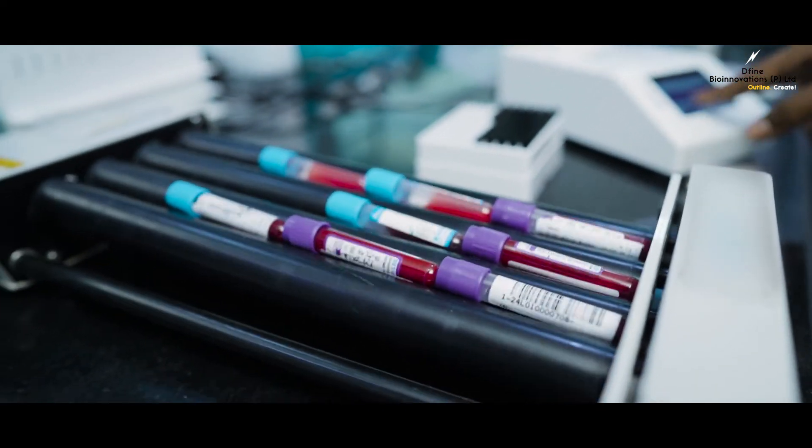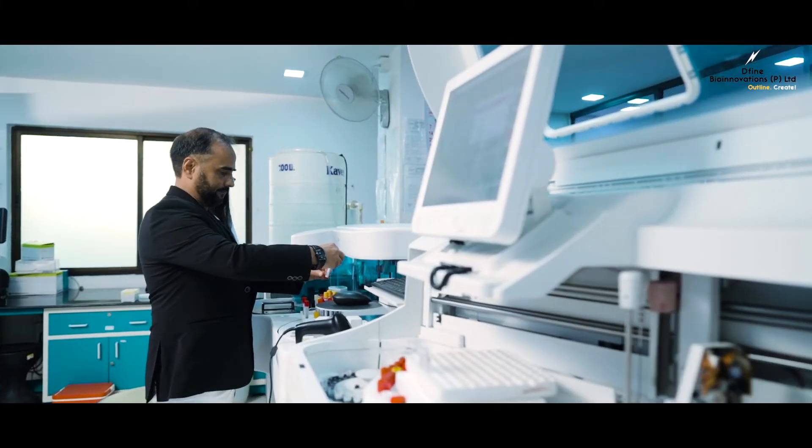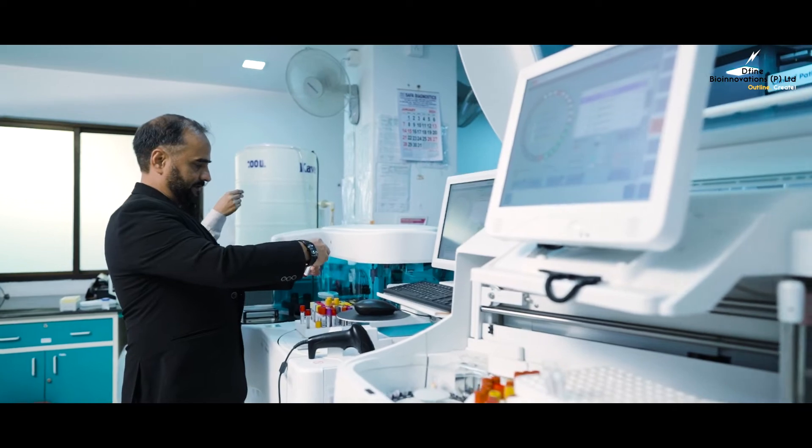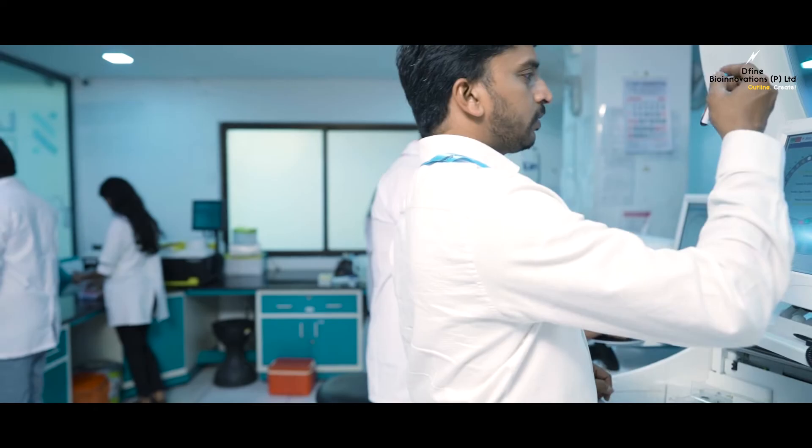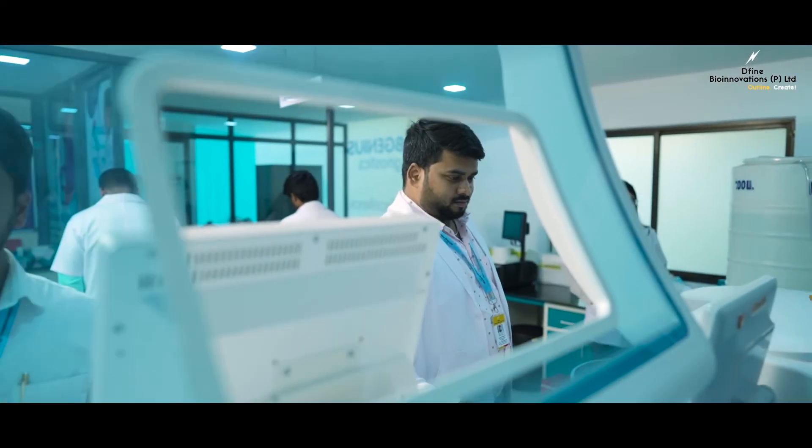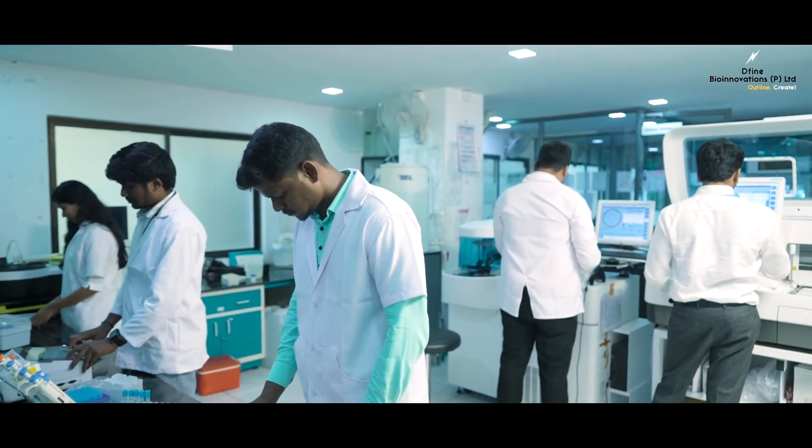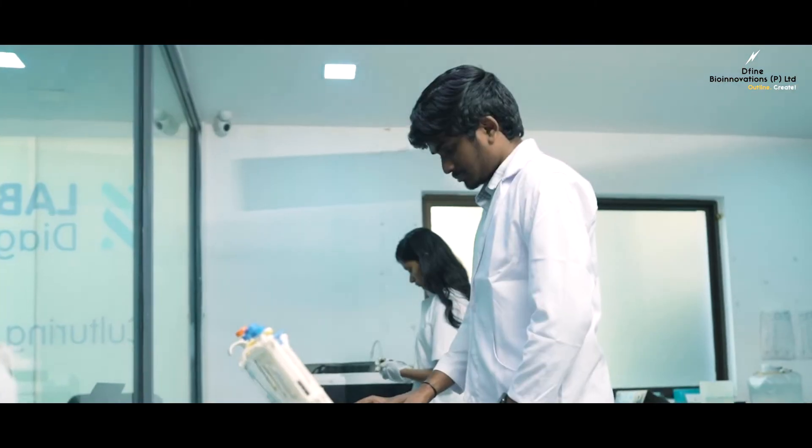Designed to instill confidence in reporting, the Zeta-1's dual technology serves as a secondary reference for challenging samples. It encourages labs to embrace in-house testing for most coagulation parameters, eliminating outsourcing concerns.